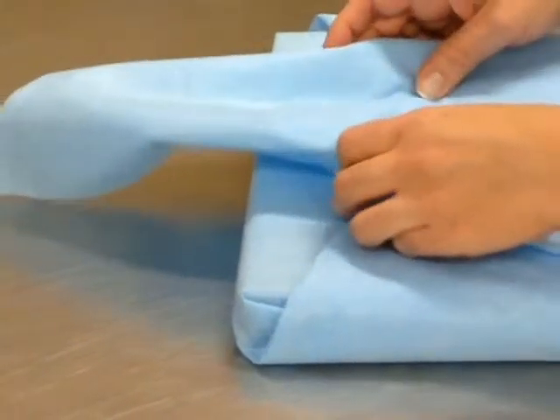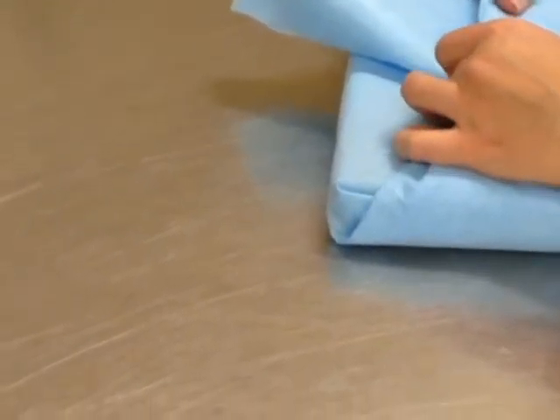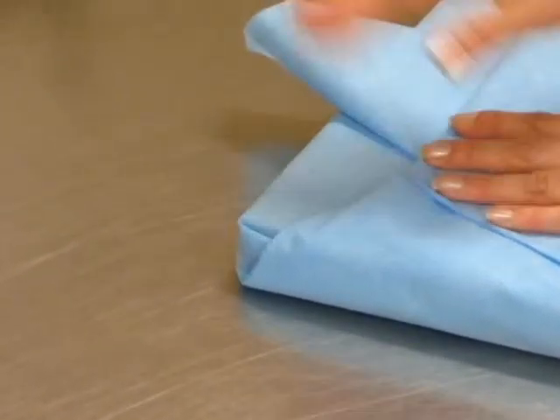Make sure it's tight but not too tight. Then tuck this in here so you can leave a tab when you are going to open that in the OR.